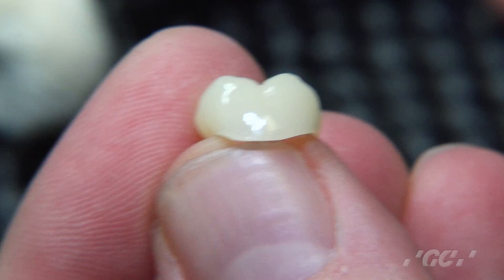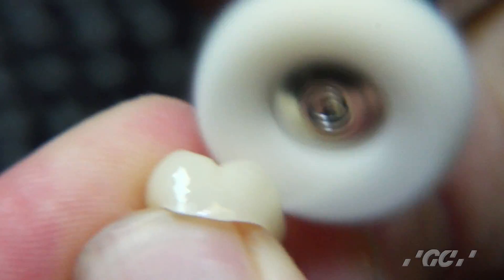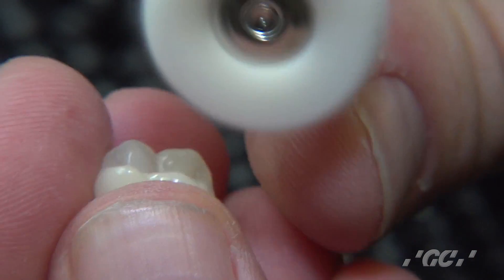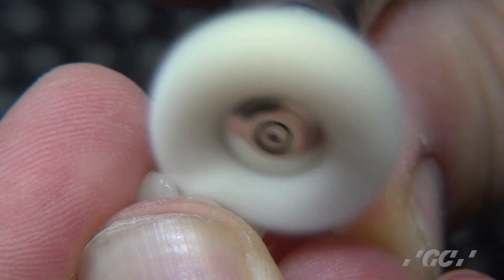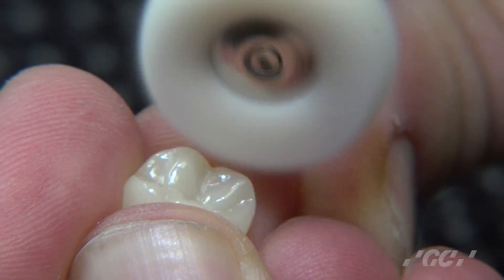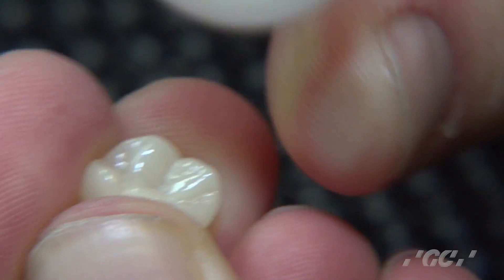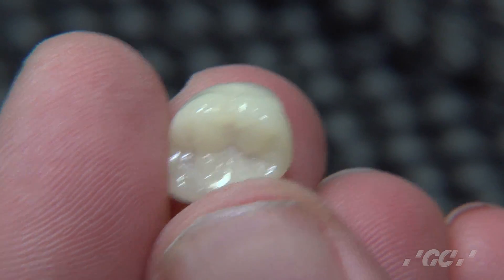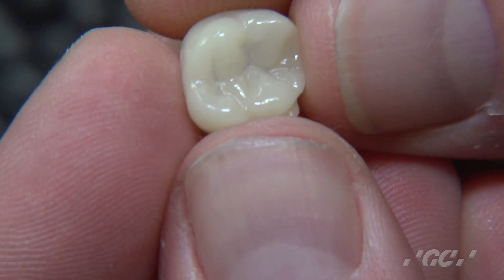But if you really wanted to take it up a notch, there's also a cotton buff wheel that you can use to really bring out that shine. A little bit on the occlusal — I'm doing this on medium speed, just going in a circular motion. And there you have it. As you can see, it's a very highly polished crown, and it's a very simple process.